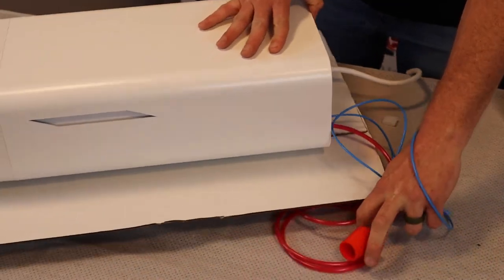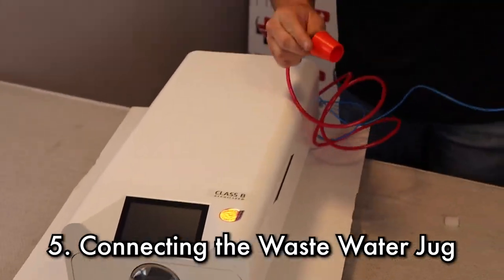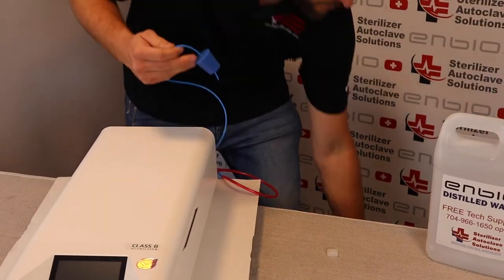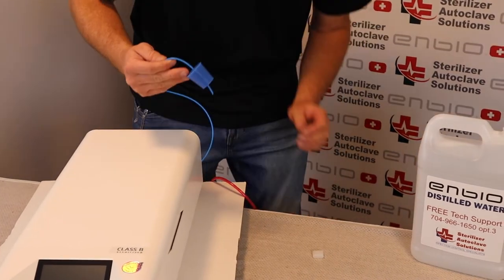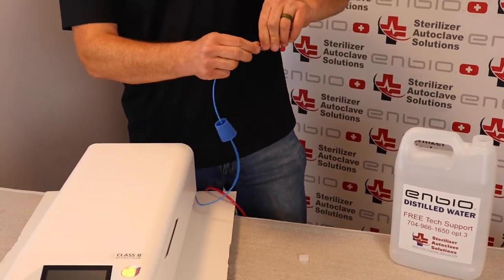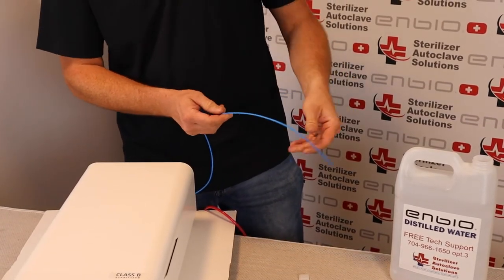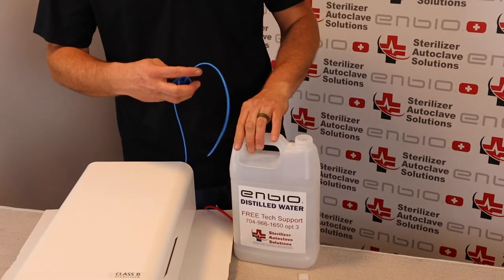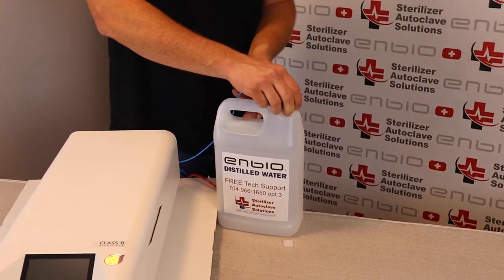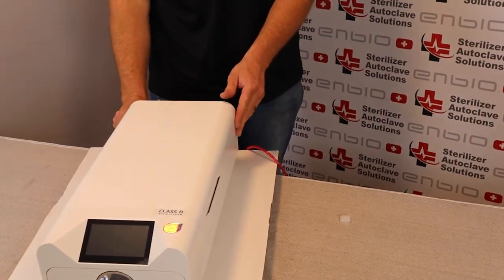I'm going to spin this back around. The wastewater line, you can just put below the table level. The distilled water line, you want to extend this out and try to straighten this line because you need this end below water level. Once your jug is filled with distilled water, go ahead and insert that in, put it below table level, and turn on your unit.